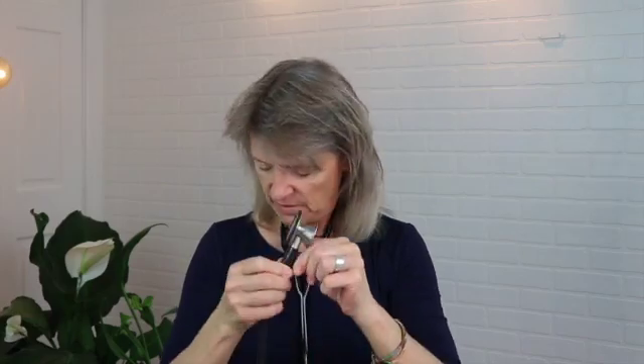Alright, so this is the reason why I thought I goofed. When I looked on the website and watched videos, they say you can use the attachment with an old stethoscope. So I'm going to try that. This is my old Littman Cardiology 3 — it's pretty dirty. I've had it so long I have black tape around it. I'm going to take this tape off and see what's going on. I originally planned to compare the Littman Core and another stethoscope today, but I found out I may have made a mistake even in my last video about the Echo.